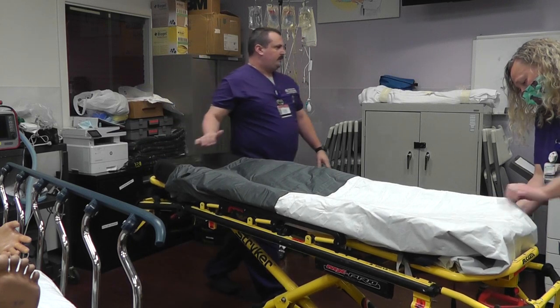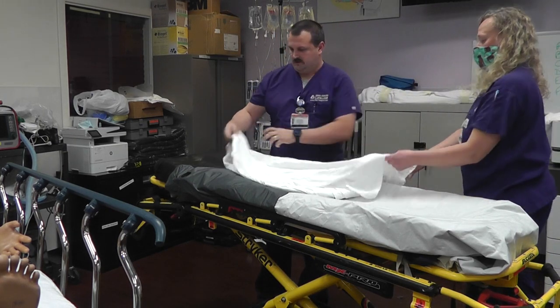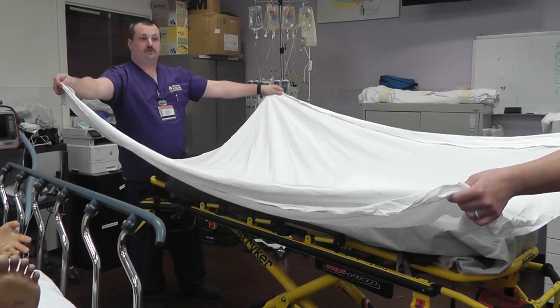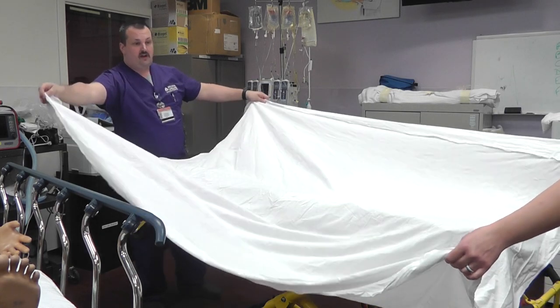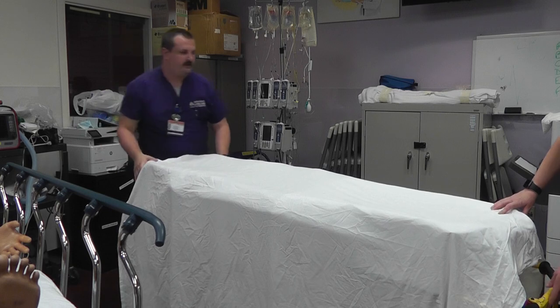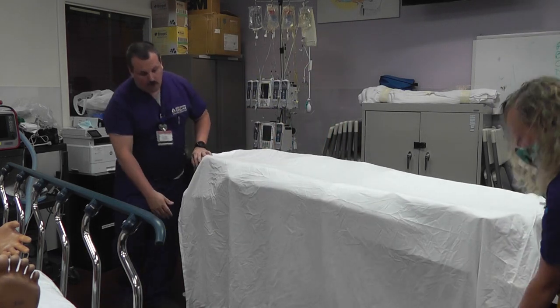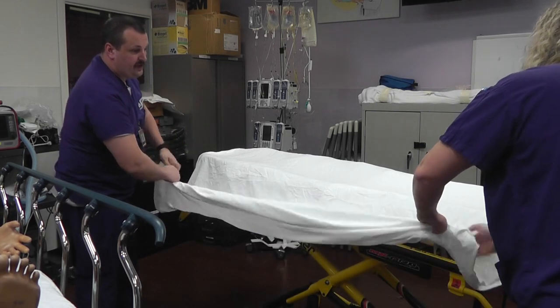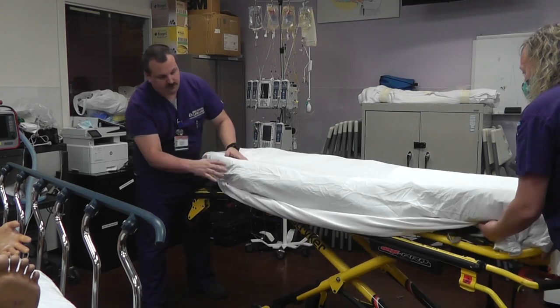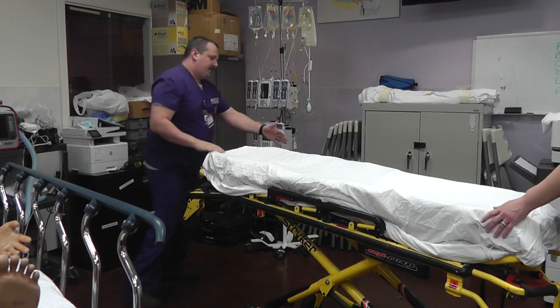Now that the air pal is on the stretcher, we're going to take the sheet and place it on the stretcher. The sheet will be positioned so that there's extra length off the right side of the stretcher, which should be rolled and tucked under the mattress. We unroll the sheet all the way — a lot of times we have it folded in half, but in this case we want it extra long off the sides. We leave the majority of the length going off the patient's right side, almost to the ground. The left side still has decent length but much shorter. We then roll that extra length up, because this gives you extra length for an emergency supination — to basically burrito the patient and roll them over. Roll it up gently and tuck it slightly underneath the mattress so you can easily get to it, then tuck the other side just like normal.